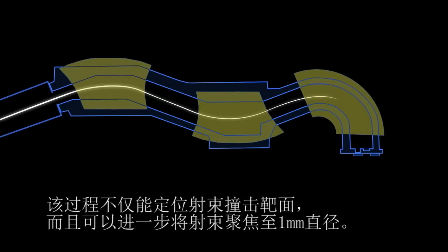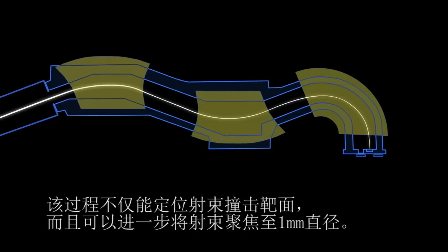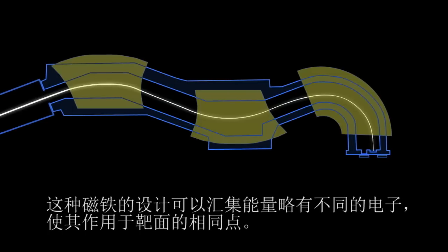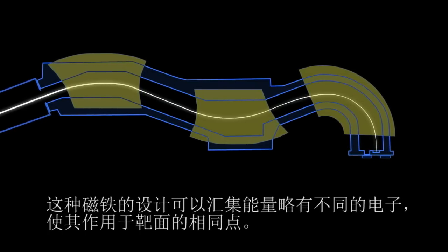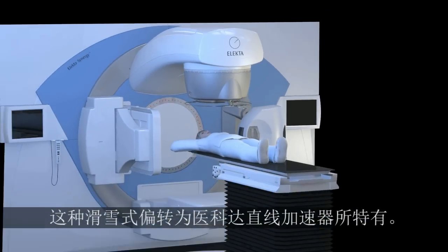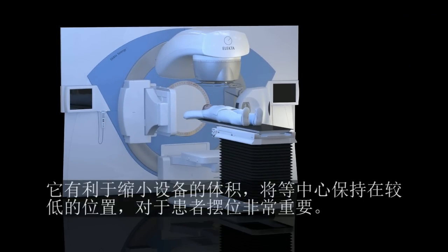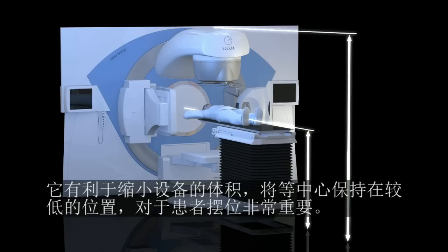This process not only positions the beam to strike the target, but it also further focuses the beam to a diameter of one millimeter. The design of the magnets enables them to focus electrons of slightly different energies onto the same point on the target — this is called achromatic behavior. This slalom bending is unique to Elekta linear accelerators. It helps to minimize the size of the machine and ensures that its isocenter remains low, which is important for patient setup.